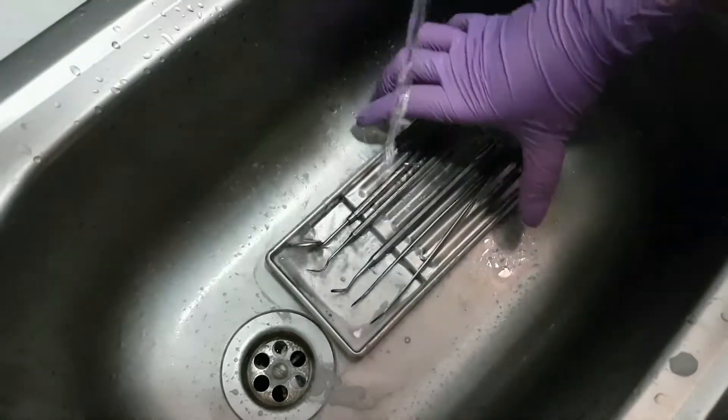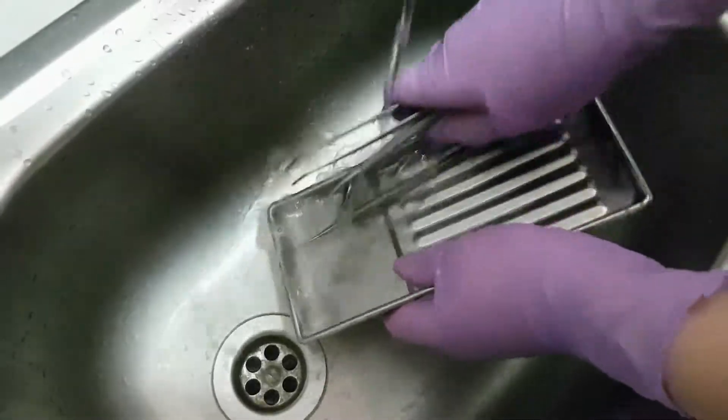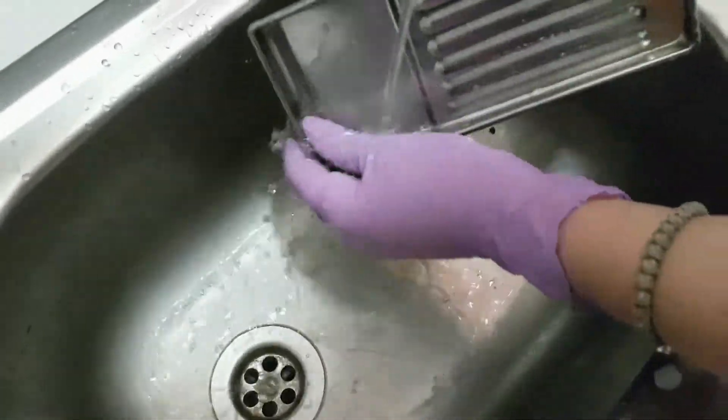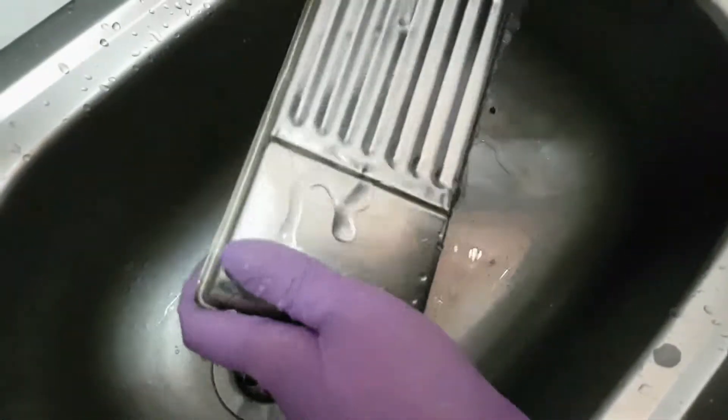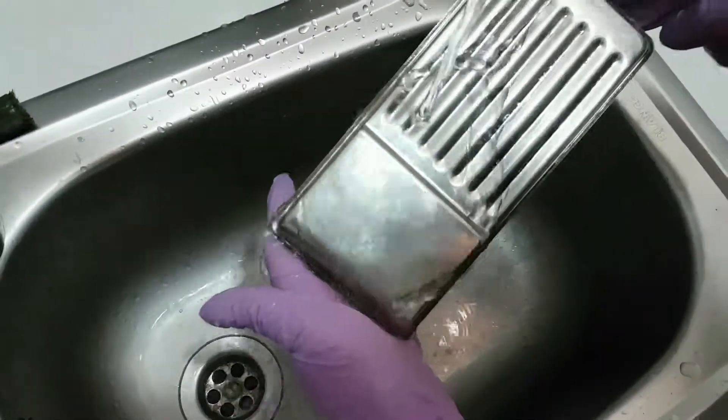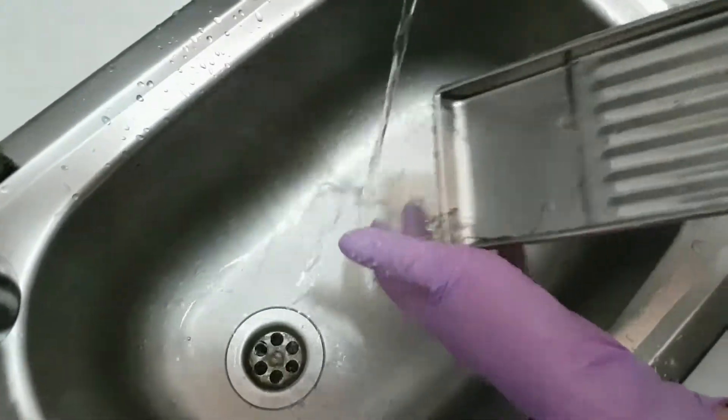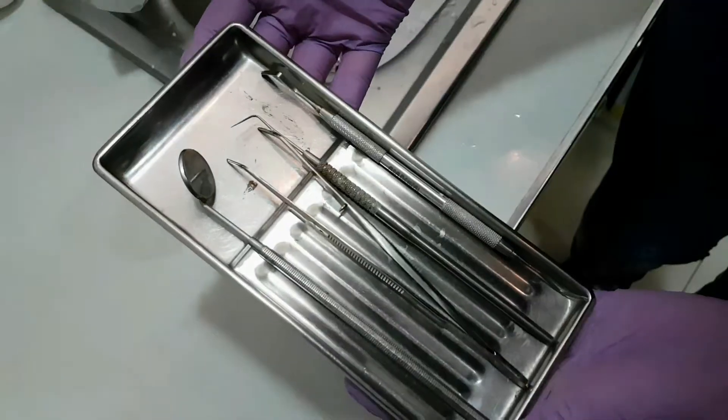Next, we wash off with water the disinfection spray. We do all this before we put the instruments in the machine for sterilization.